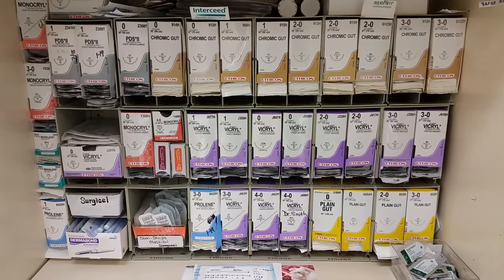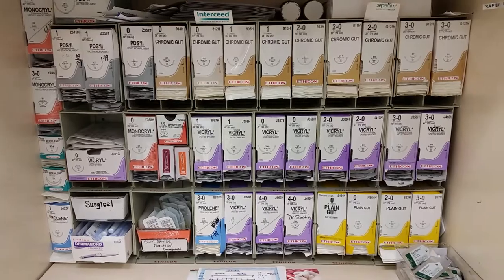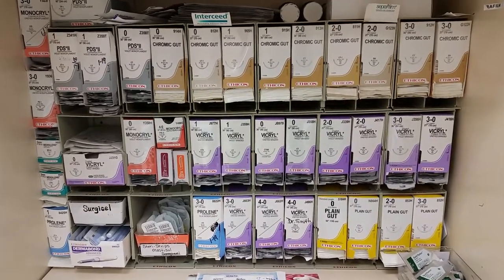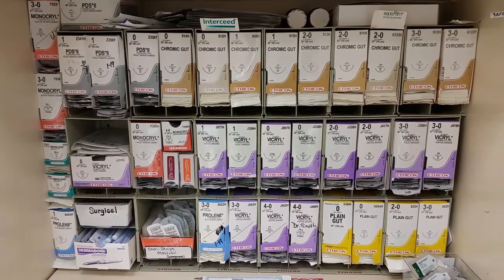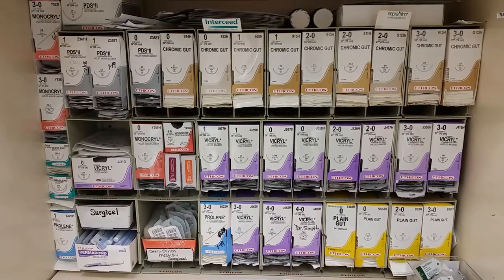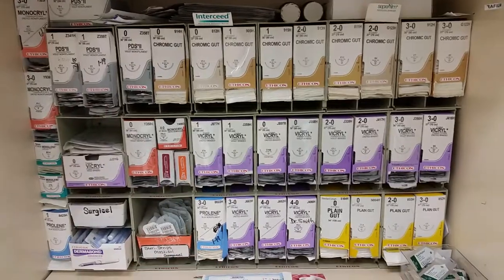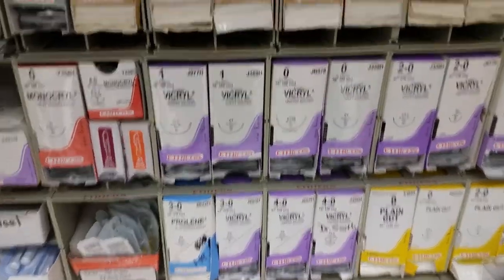Today I want to talk in more detail about the sutures in this cabinet. Everything you see in here is basically what all our surgeons use — in combination of different things. Not everybody uses the same sutures, but everything here is what they use.